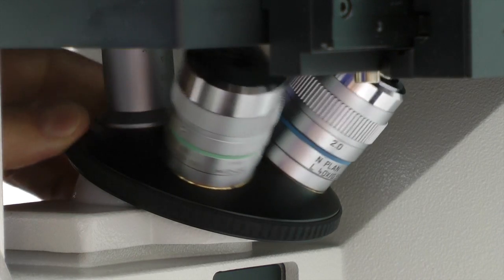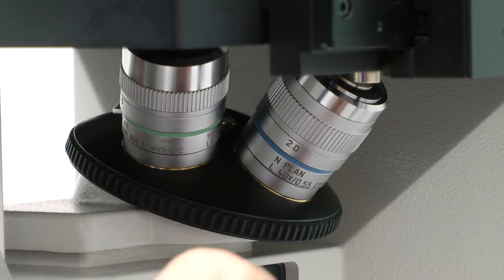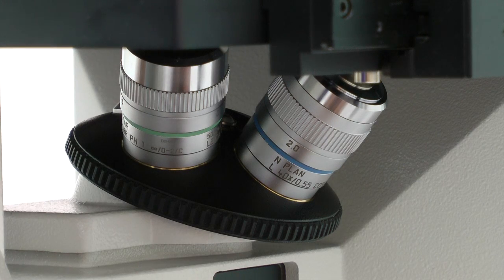We recommend the use of a good quality laboratory microscope for sperm concentration and motility analysis. Phase contrast optics with a magnification of 10 times to 40 times is recommended for easy visualization of the sperm cells. The MicroCell contains no counting grid, and it is therefore necessary to make use of an eyepiece reticle in the microscope to determine the area to be counted.